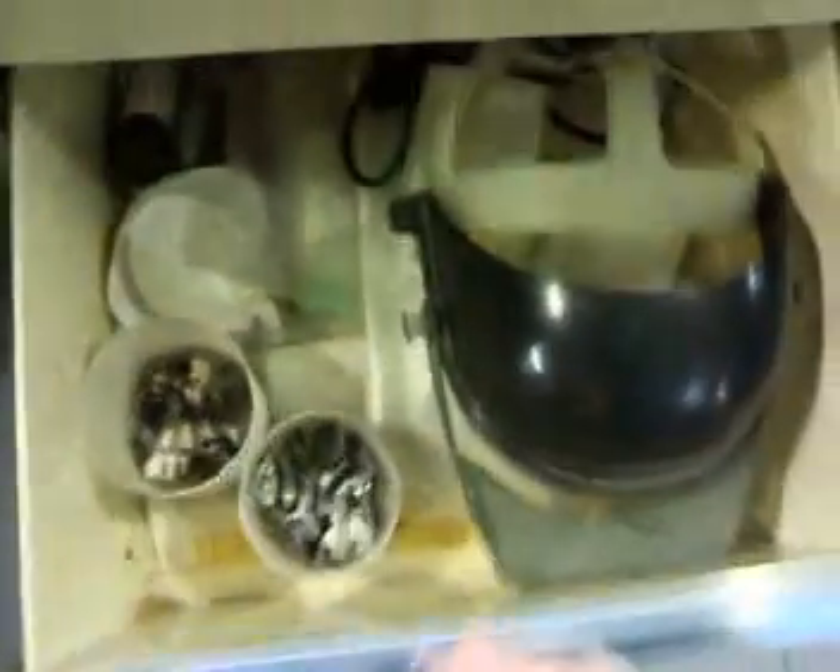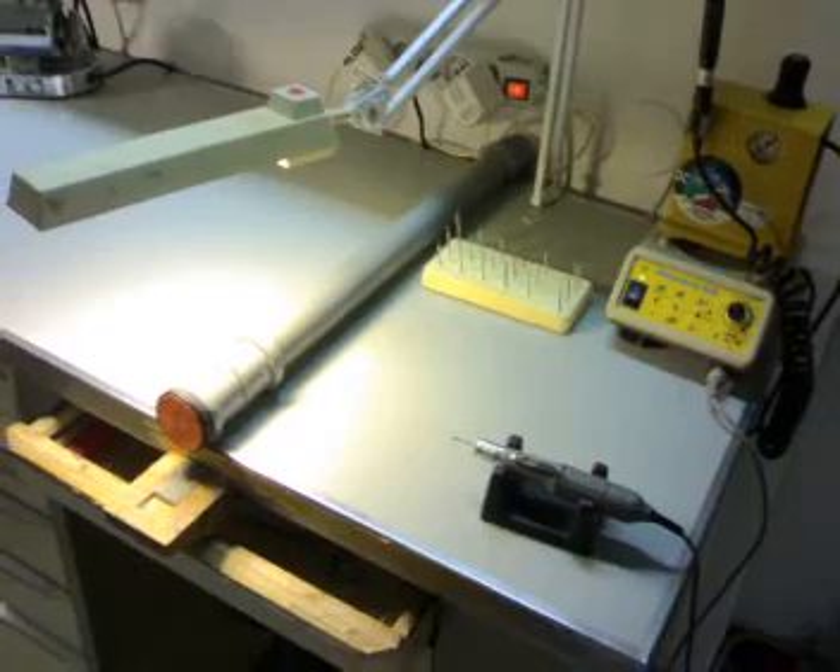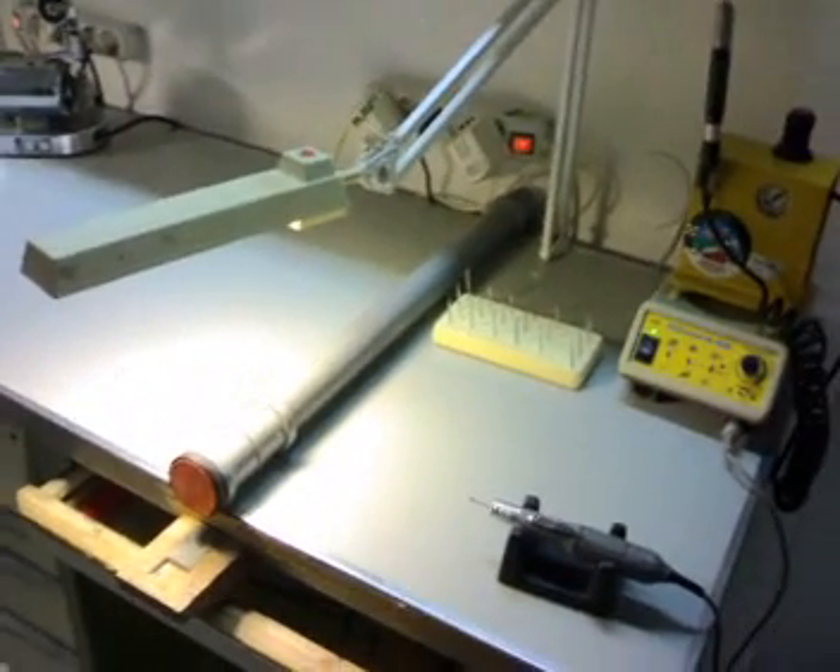I use a mask when working here. I also like to work under the microscope sometimes — when I need to do margins or detailed work — or I use my binocular glasses. If needed, I go into the other room where I have my microscope. Once the metal is finished, it's brought down and completed the right way, then I go to my micro sandblaster right here.